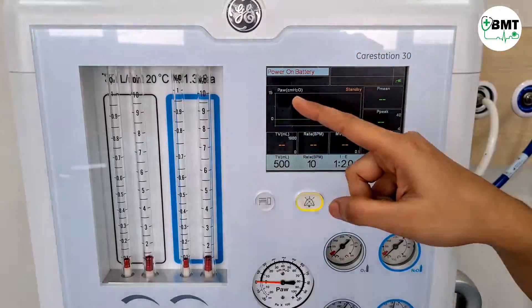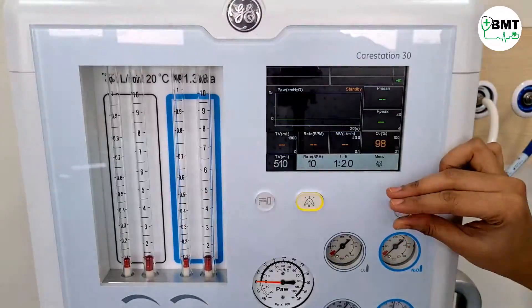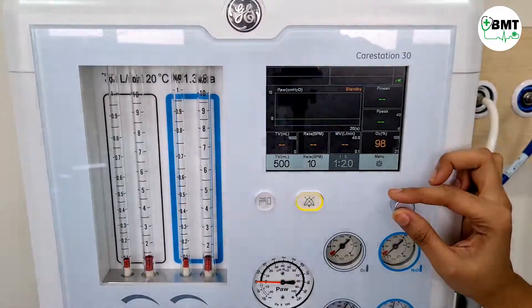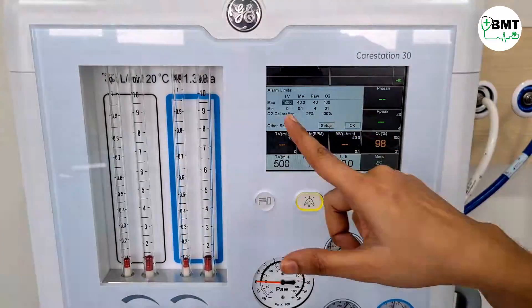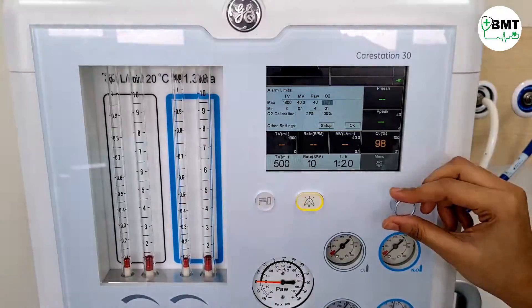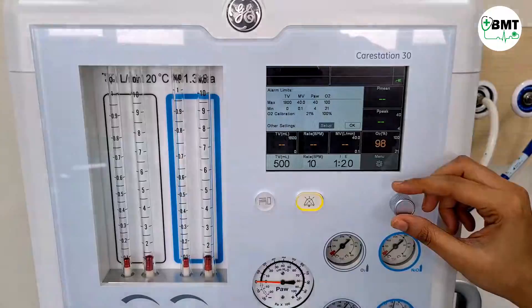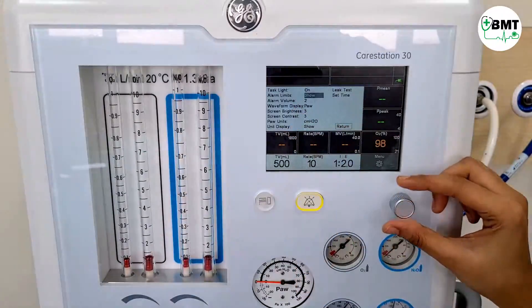This will be the screen which appears when the machine is on. If you want to change any setting, go to tidal volume — increase, decrease, set. Go to rate — increase, decrease, set. In this way you can set the parameters. Go to menu where you can set the upper and lower limits, minimum and maximum. From here, 21% O2 calibration and 100% O2 calibration can also be done. For any other settings, go to setup.